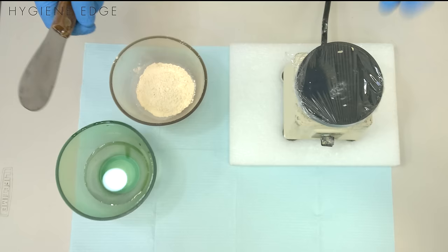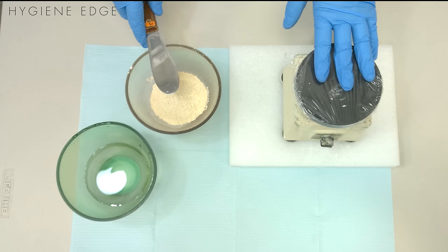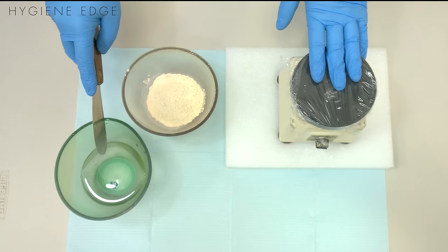To mix stone for the perfect impression, you want to make sure your ratio is correct. The ratio of stone to water is about three-fourths of a cup of stone to two and a half tablespoons of liquid.